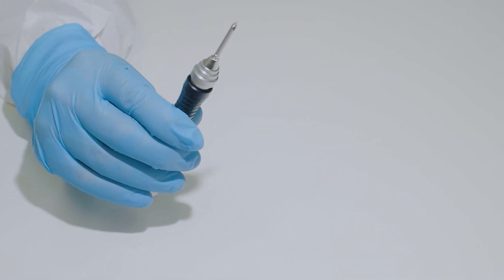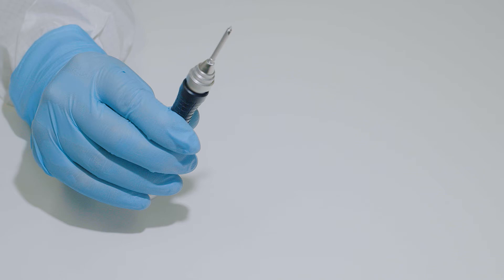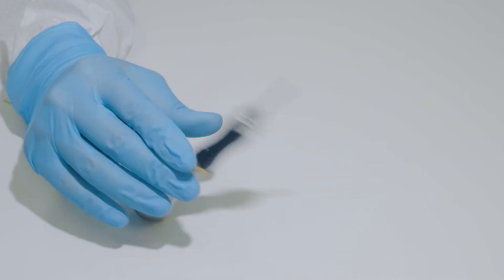Due to the friction fit connection, the screw is designed to not disconnect from the driver blade in the case of dropping the handpiece or sudden movement.